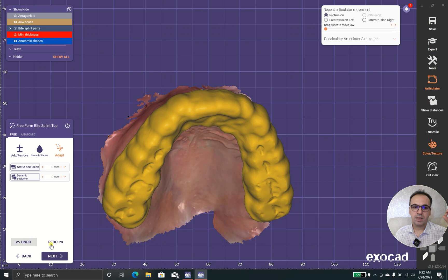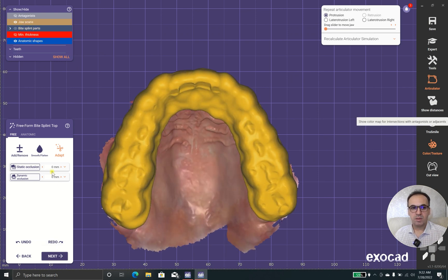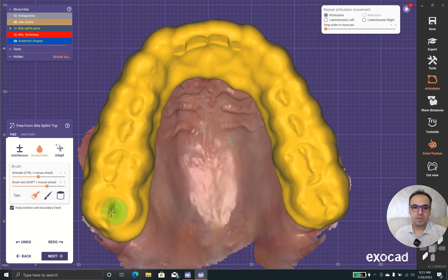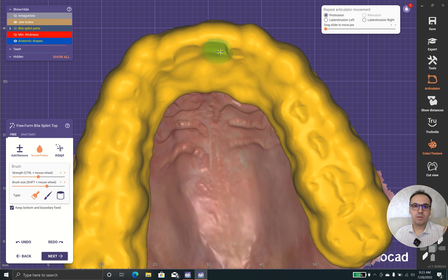Dynamic or static — which one is your choice? My choice is completely obvious: dynamic. Dynamic is far better, in case that you make proper adjustments you will get good results with dynamic, but dynamic should be favored.